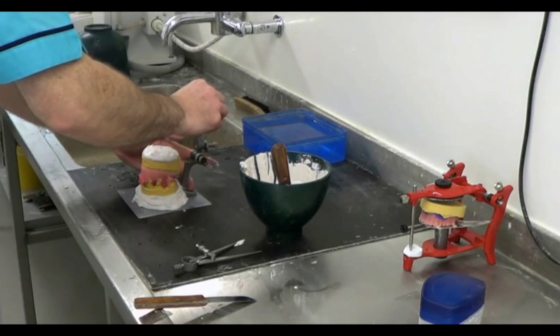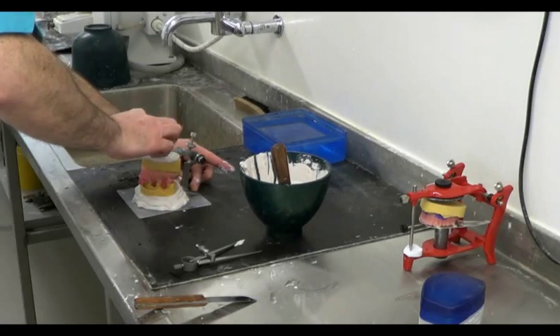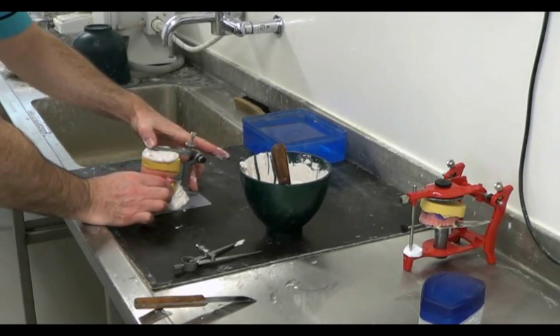Next, we apply more plaster to the upper model and sink the arm into it, before applying still more over the top of it with sufficient depth to give it the required strength.